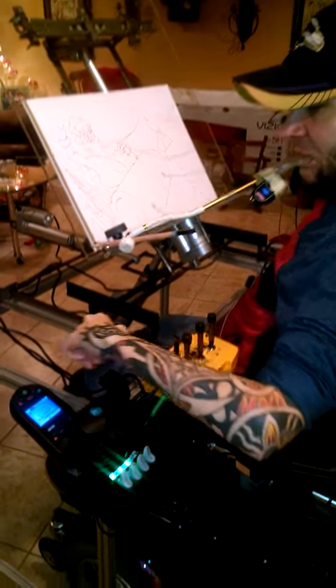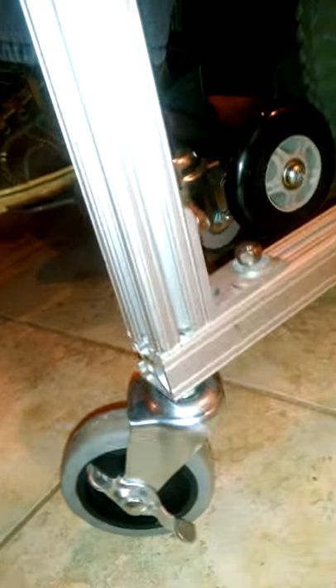Can you take a look at the table and get really close around the edges and the gears — like the floor. See how it goes around my chair. It's got locks on the wheels. I forget what the metal is called — it's like A24 or A40 or something like that. Pretty cool.